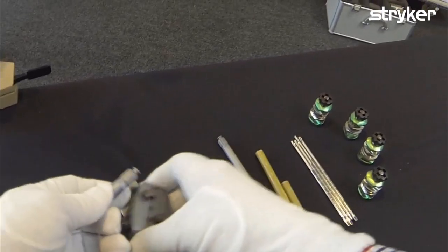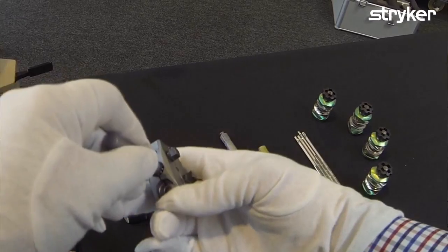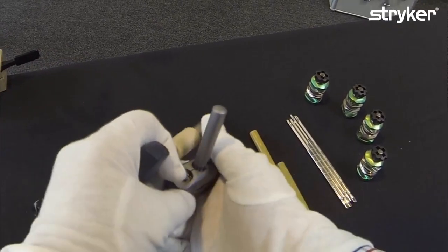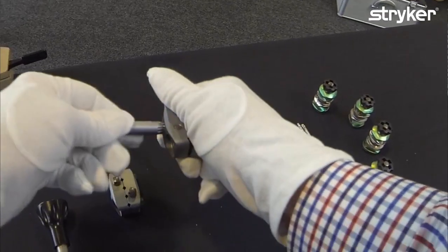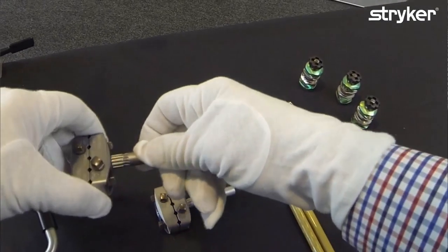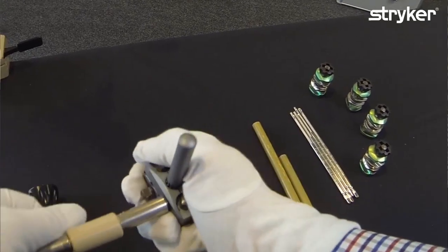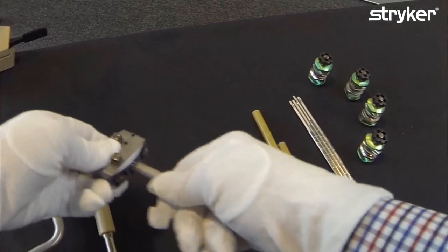The first thing to do is to be sure that you have the side arm in the multi-pin holding clamp. The nut which is opposite this detail is the nut which tightens the multi-pin holding clamp. So I tighten this and check to be sure it doesn't come out. I'm going to do two of those for this simple frame.